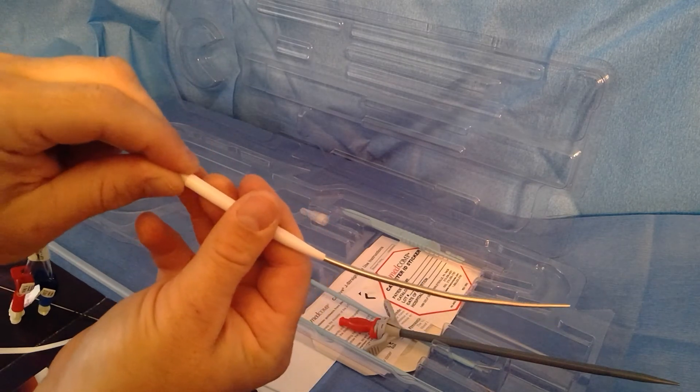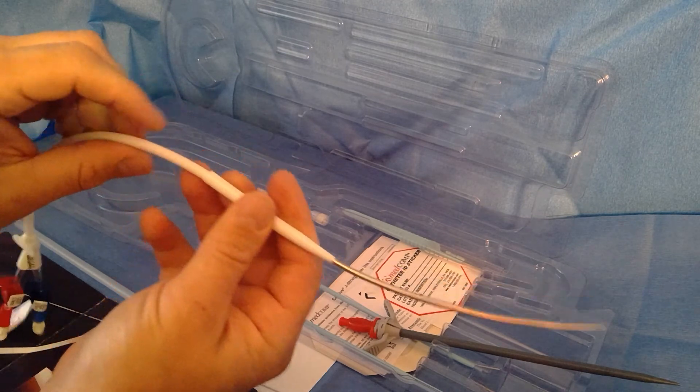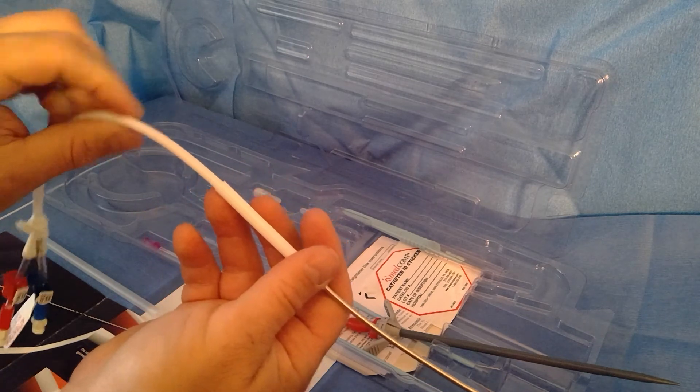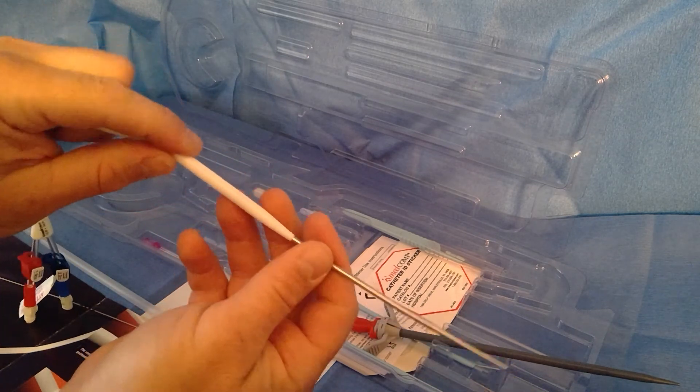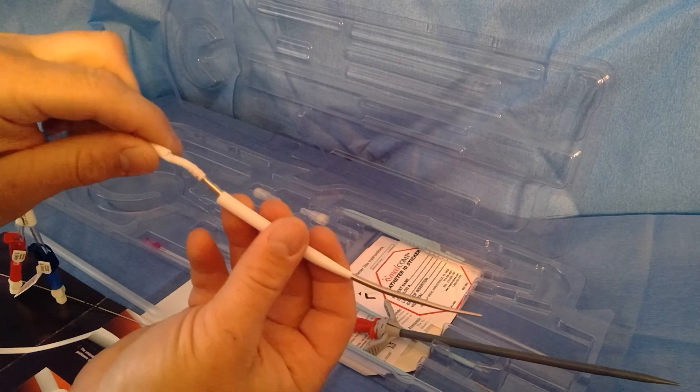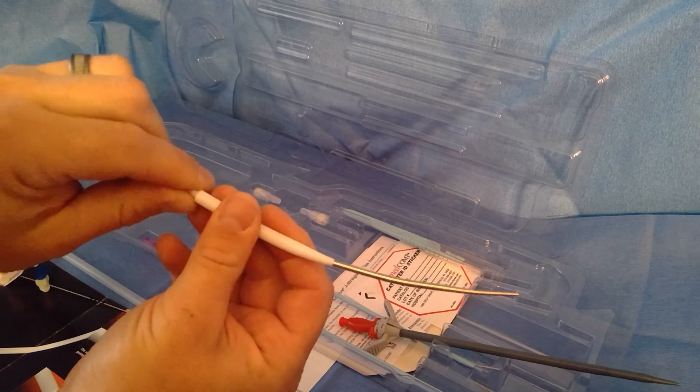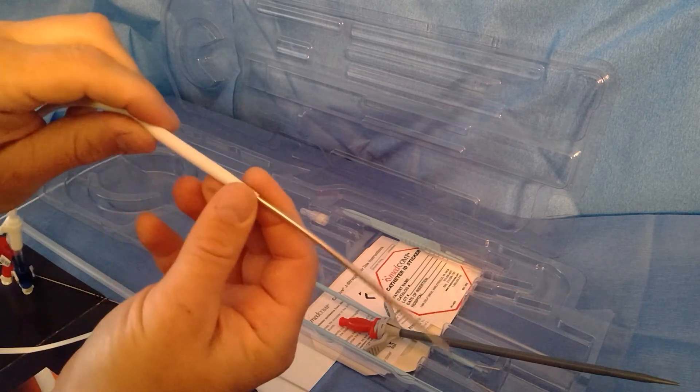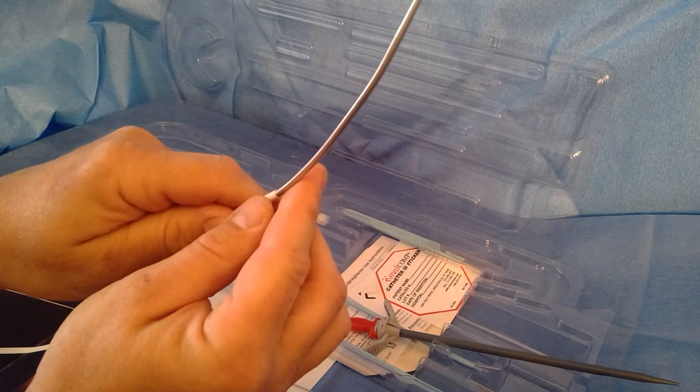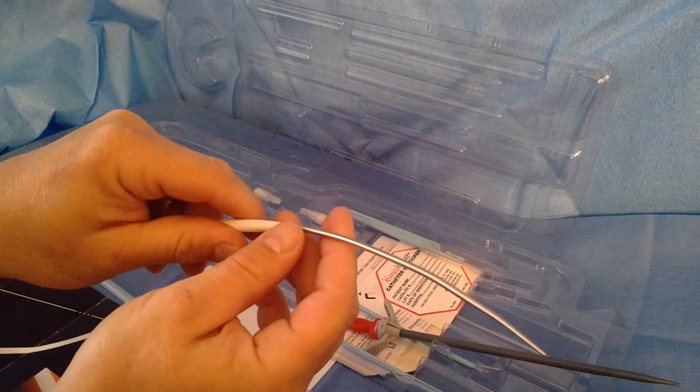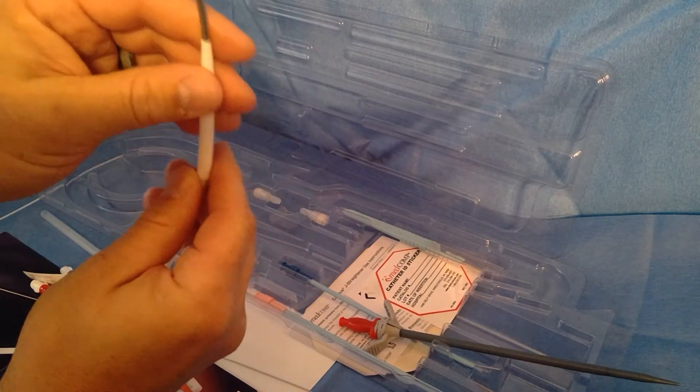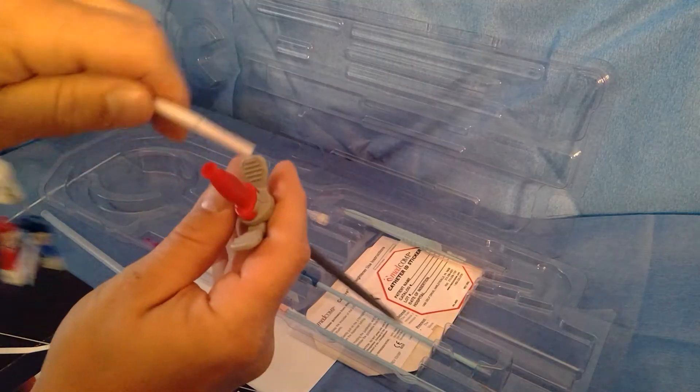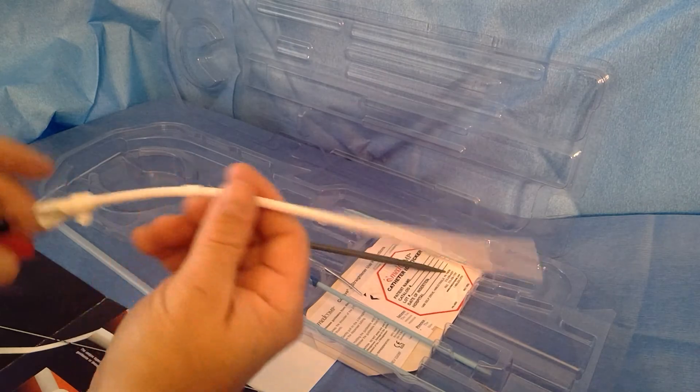The surfaces are laser cut on these catheters so they're smooth, which also minimizes fibrin tissue growth. All our catheter tips for dialysis are like that. It's a good feature of Medcomp's products, minimizes tissue growth, platelet aggregation. That would just slide over that to protect it so you don't damage it. Tunnel it up through the chest wall or groin or lumbar region through the venotomy site, take off the tunneler, and then go ahead and stick it through your air guard sheath and place it. There you go, this is the Titan step tip 15.5 French long-term dialysis catheter from Medcomp.